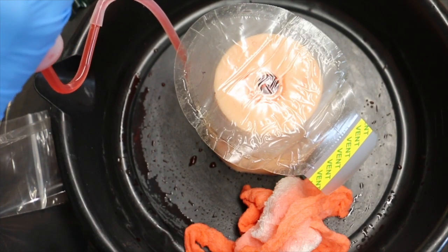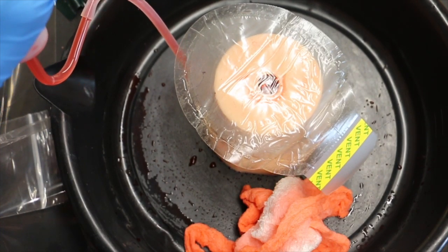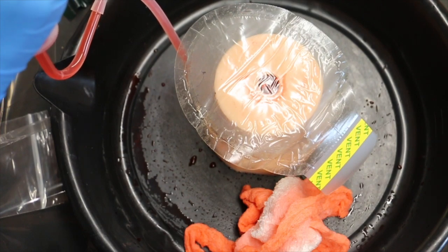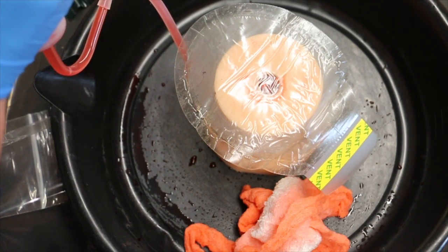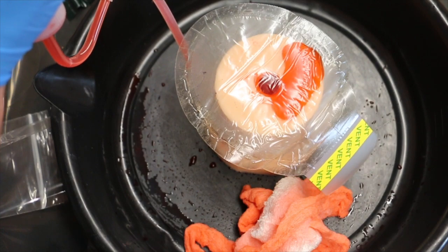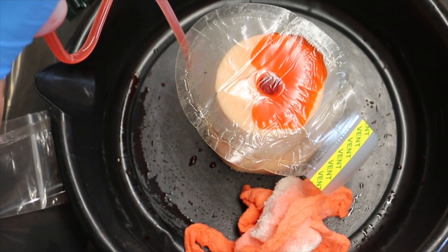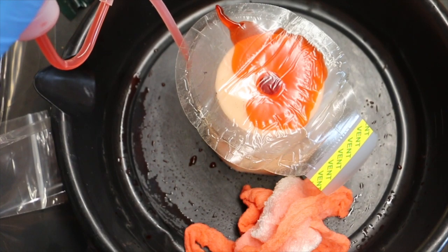So you can see it flexing back and forth. Can you see that? Yeah, pretty cool. So you can demonstrate, show the difference between a vented and non-vented chest seal and it found a vent.